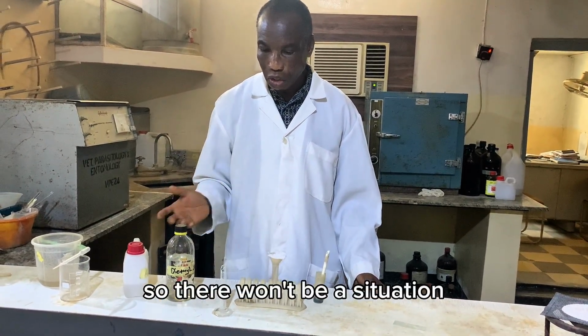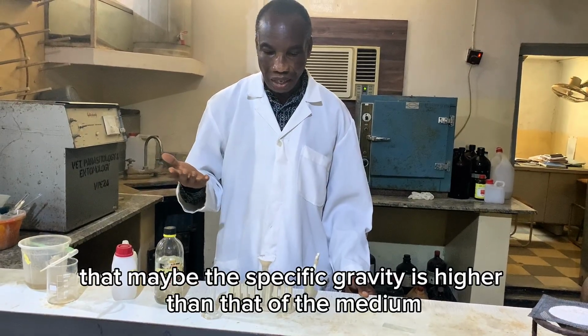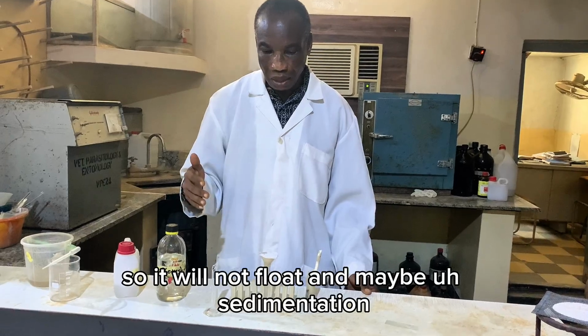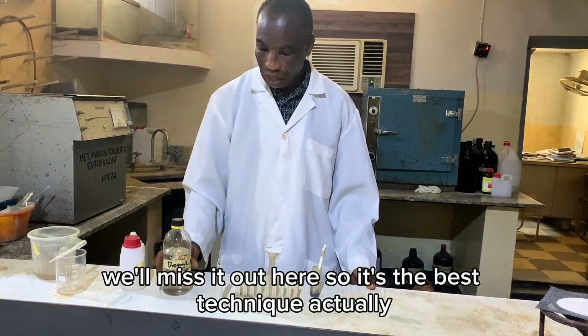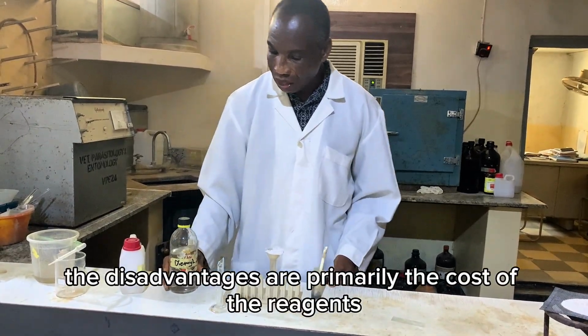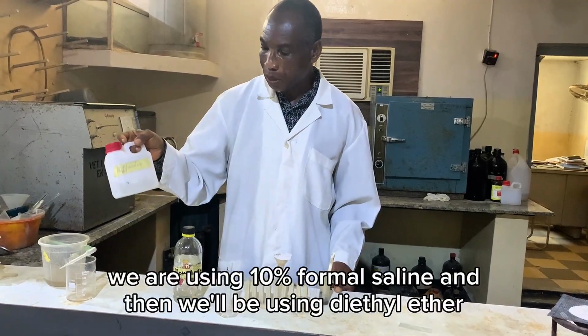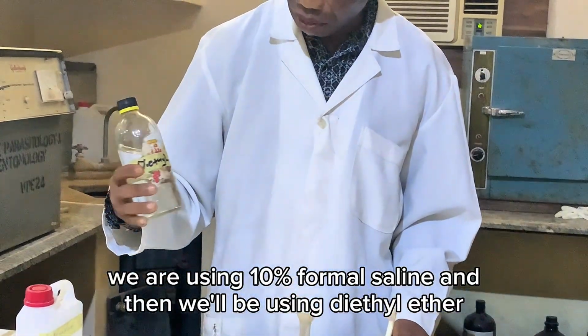So there won't be a situation where maybe the specific gravity is higher than that of the medium, so it will not float, and maybe sedimentation will miss it out. So it's the best technique actually. The disadvantages are primarily the cost of the reagents. We are using 10% formal saline, and then we'll be using diethyl ether.